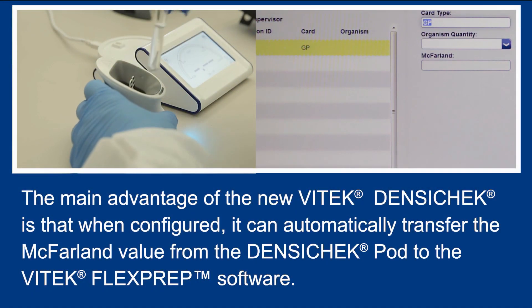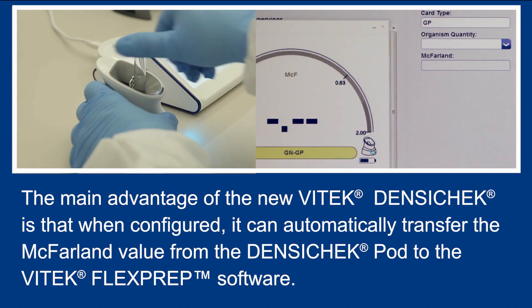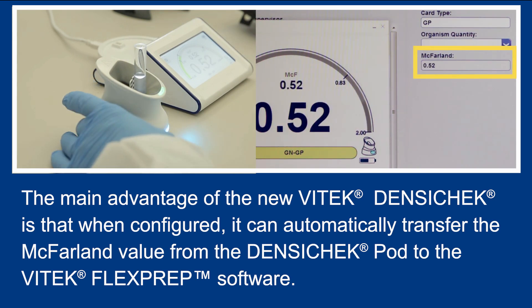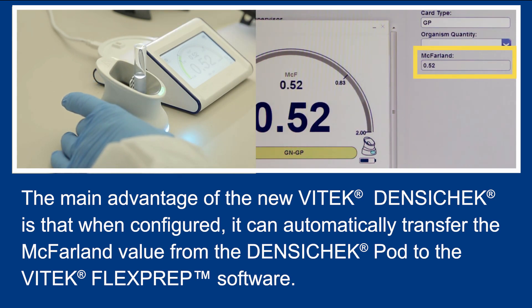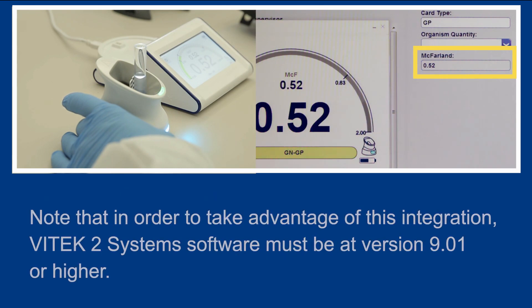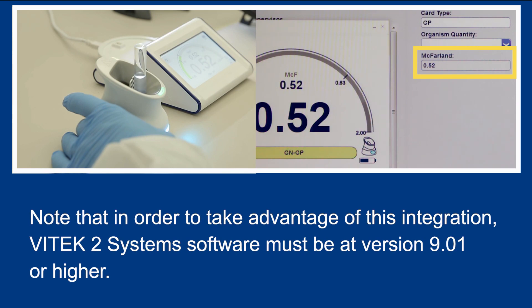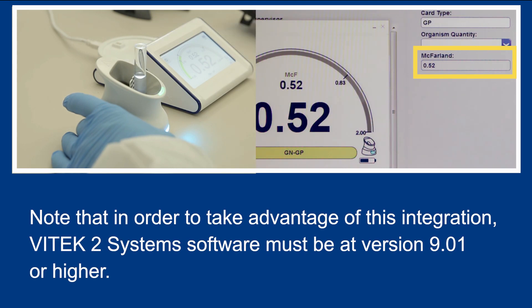The main advantage of the new Vitek Densichek is that when configured, it can automatically transfer the McFarland value from the Densichek Pod to the Vitek FlexPrep software. Note that in order to take advantage of this integration, Vitek 2 system software must be at version 9.01 or higher.